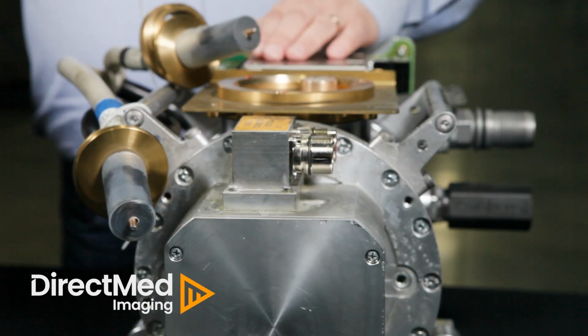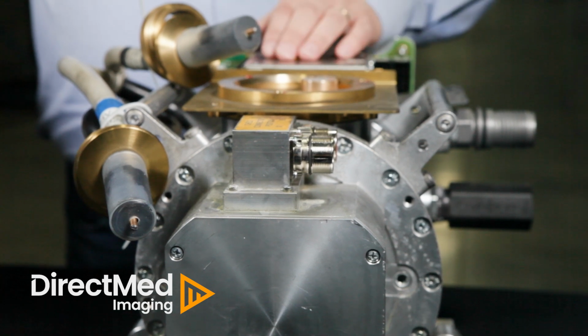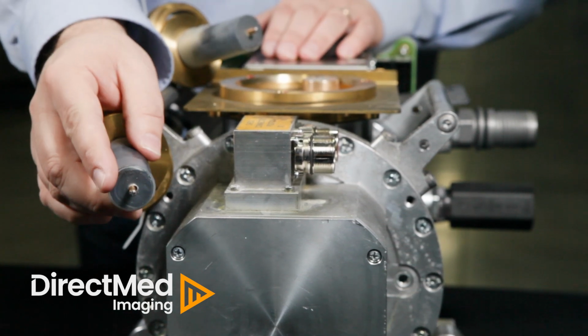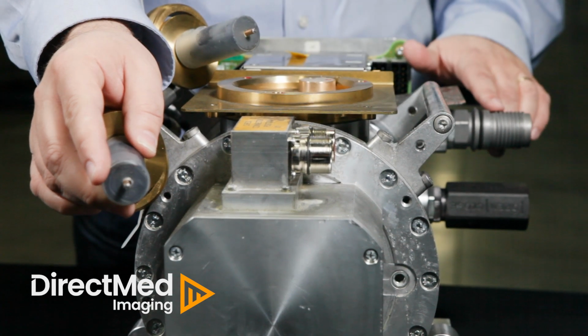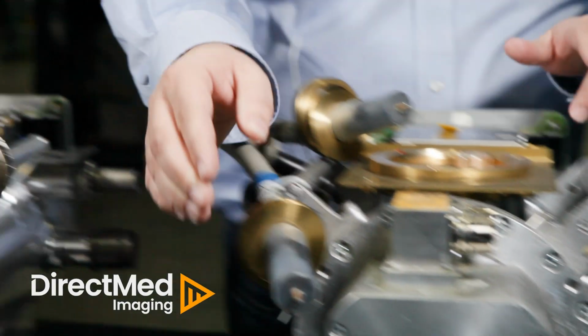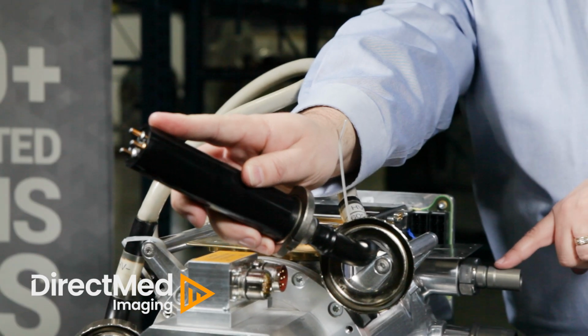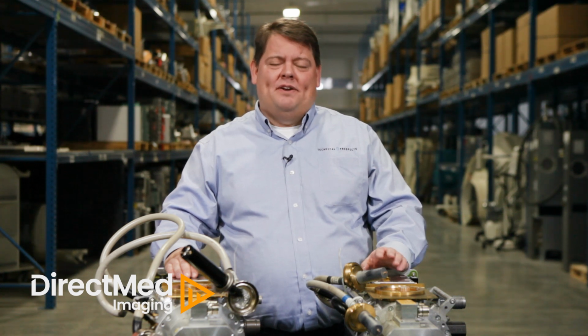With these two examples here, a key thing to look for are your connection types. Here we have the single-prong outlet with the thread-on coupler, whereas here we have your three-prong outlet with your quick disconnect coupler. These tips, plus any additional information you can provide on your Definition system, will help us identify the tube you're in need of and reduce your downtime.